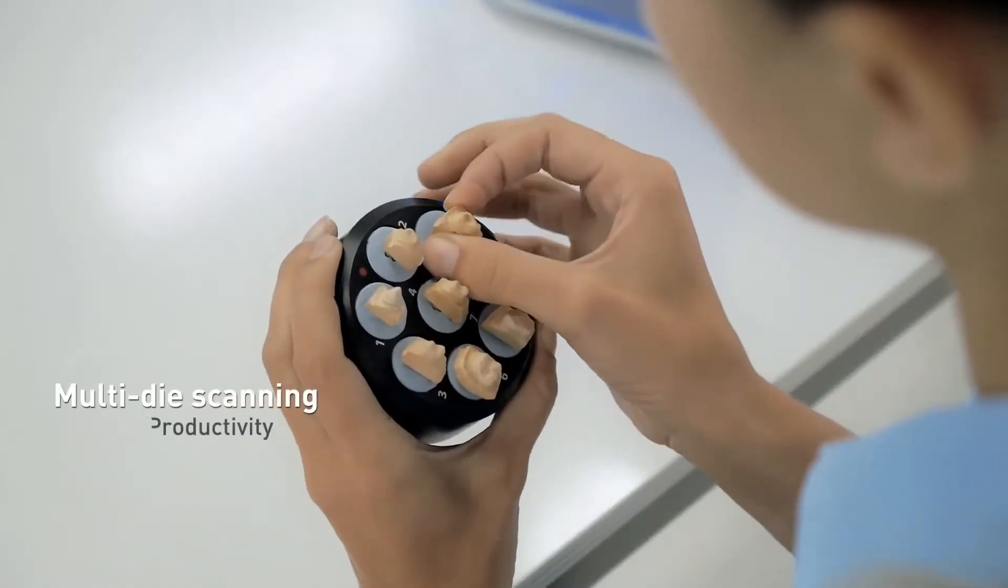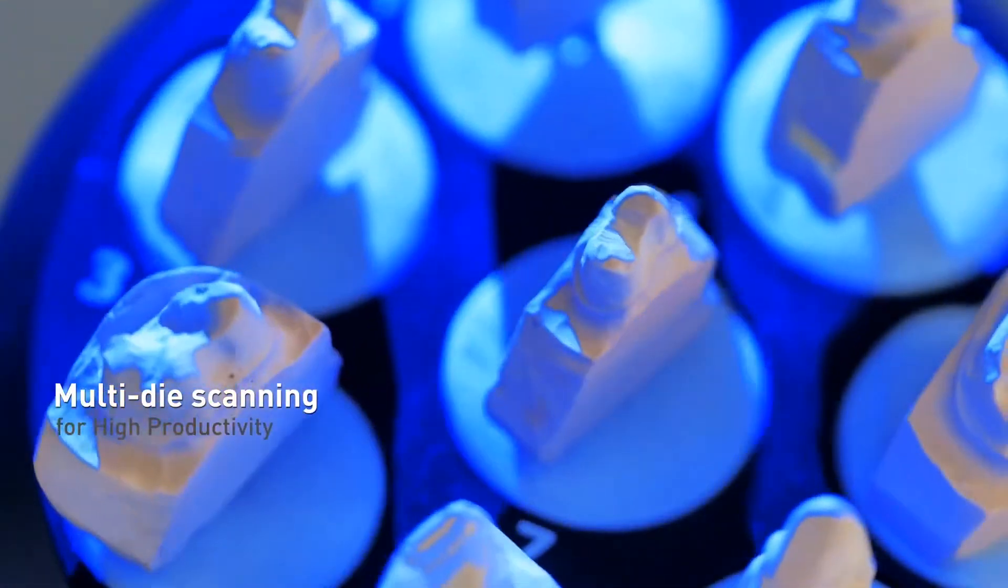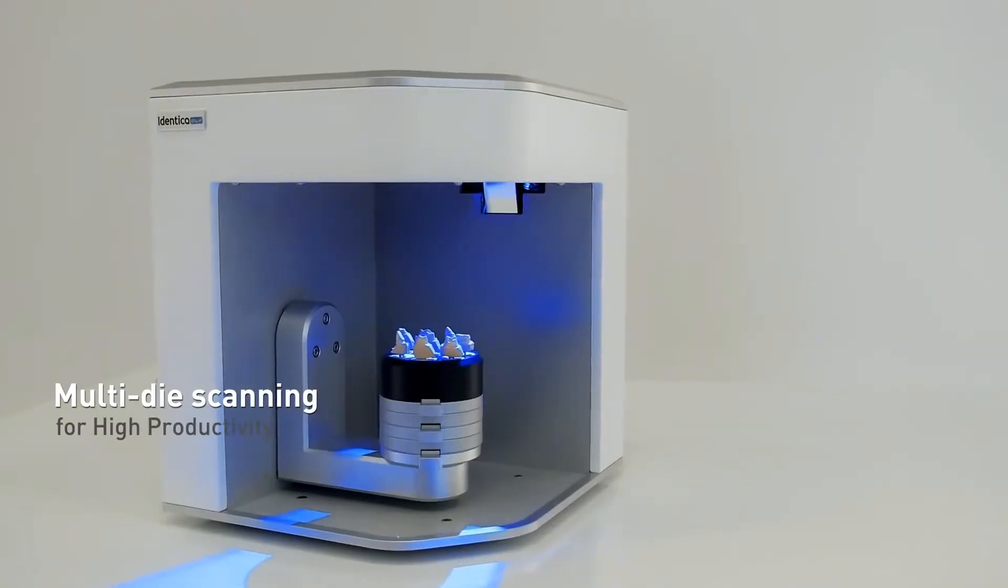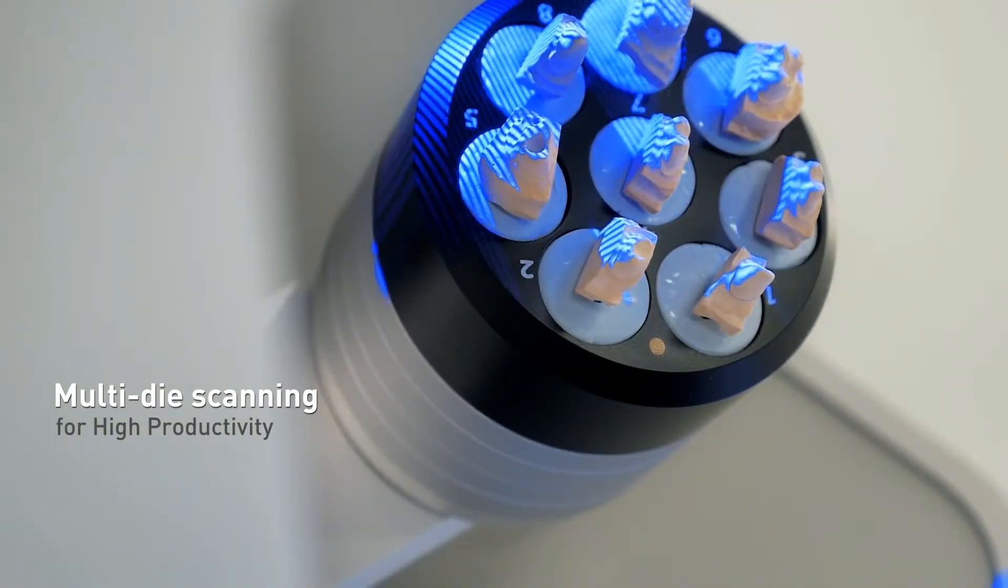Identica Blue features a multi-die scanning plate to enable dental labs to increase productivity. Up to eight dies affixed to the multi-die plate are scanned rapidly and precisely. Productivity and efficiency of the CAD operator is highly increased.